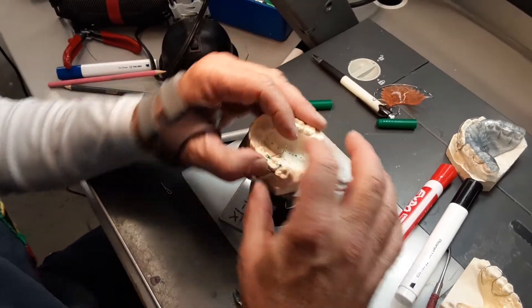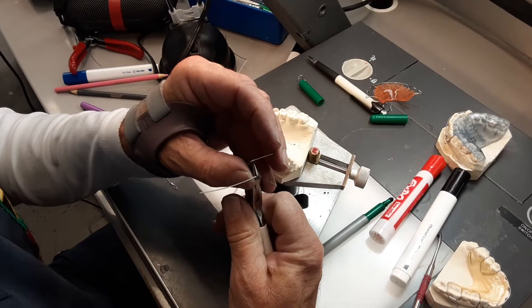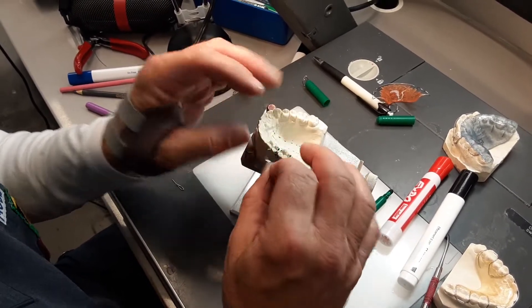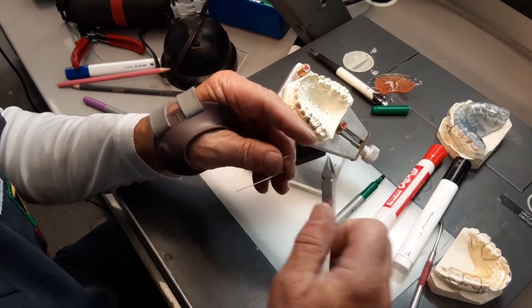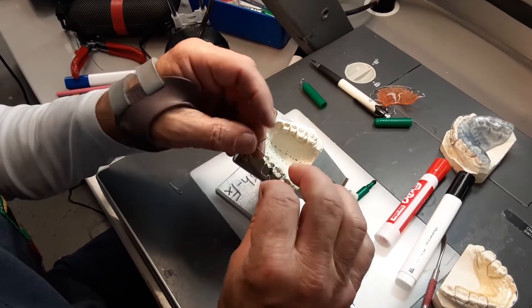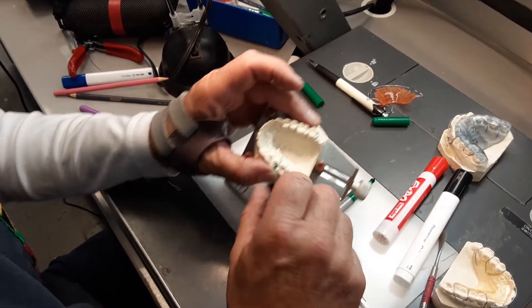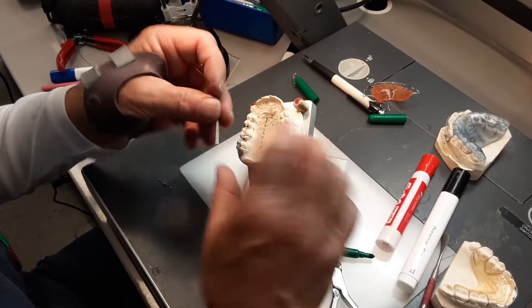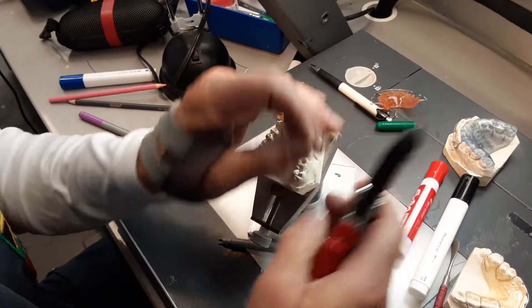It's coming down like that, looking okay. At about where the gingival margins are here, I'm going to grab the wire and just curve it to the mesial a little bit. Notice I'm doing all the work on the mesial — I'm going to finish the mesial arm completely before we go to the distal. I've curved it mesial but it's a little too far off the tissue, so I'm going to grab it where I made the curve and bring it down a little bit. I want the wire about a nice one millimeter off of the tissue. I want to end the tag about halfway between the midline and the gingival margins, which is about where I've made this bend to get the excess wire out of the way, so I'm going to cut it.